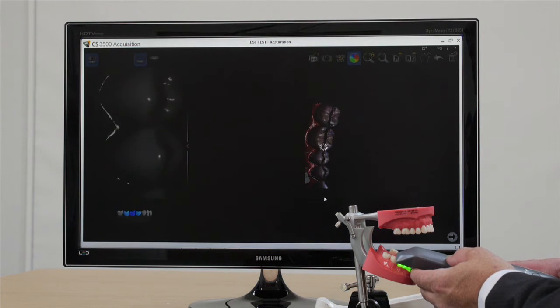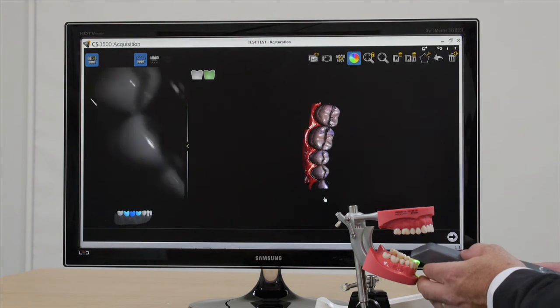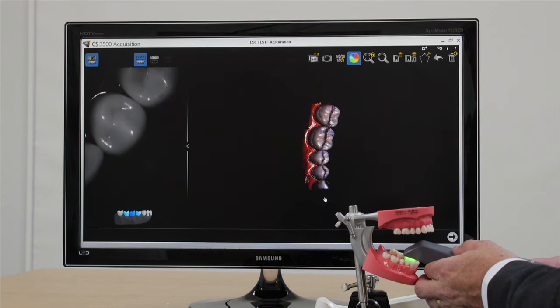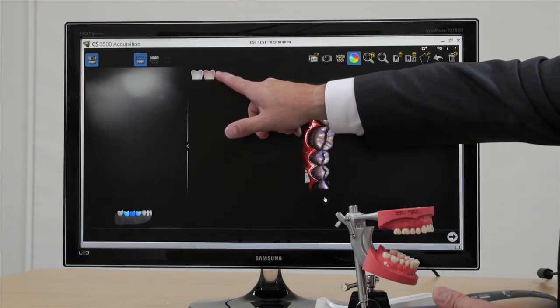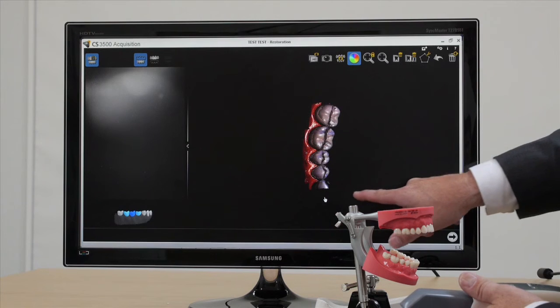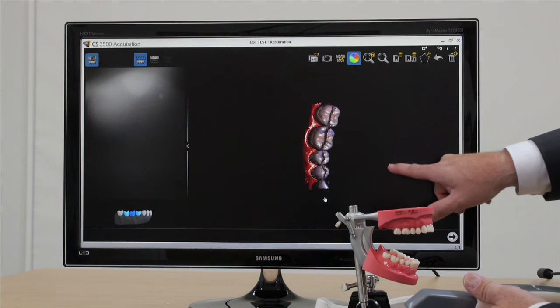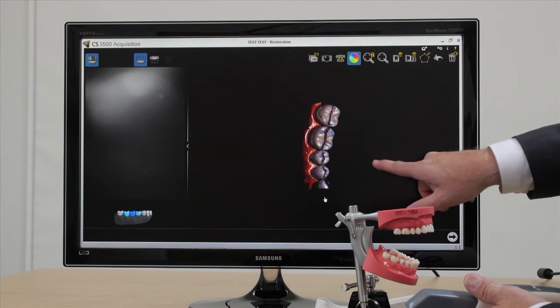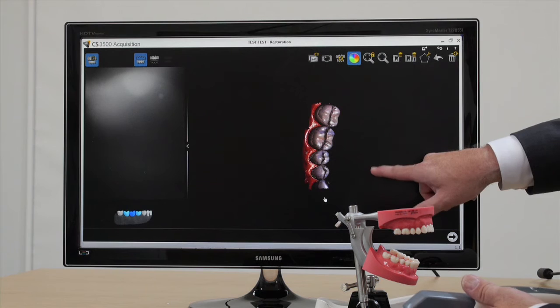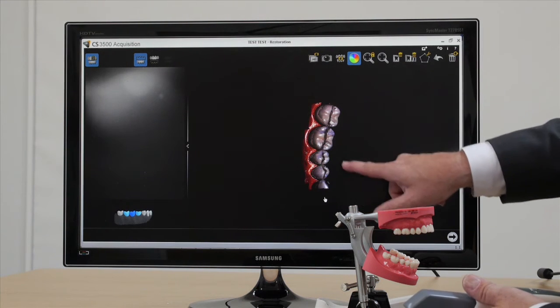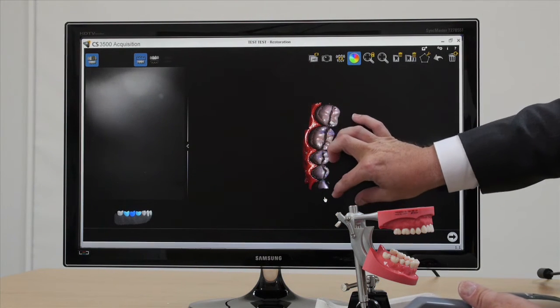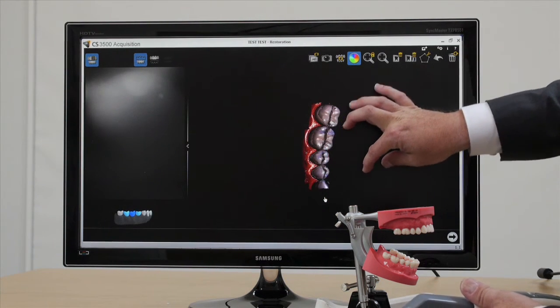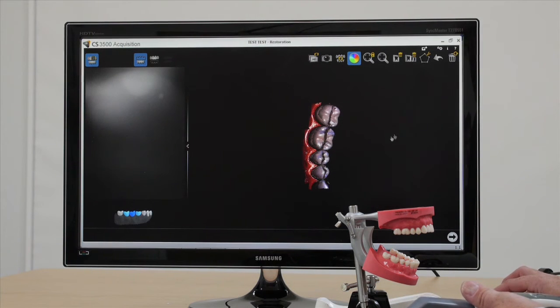I'm now going to do something wrong to show you what it does. If I scan another area of the mouth, it's gone red. That tells me that I've gone too far around here. I've tried to take a picture of the opposing arch or the other side of the arch and it cannot stitch to this image. So you've got to bear in mind that you're moving around in little steps and stages.